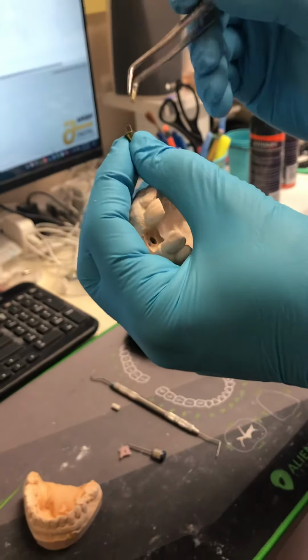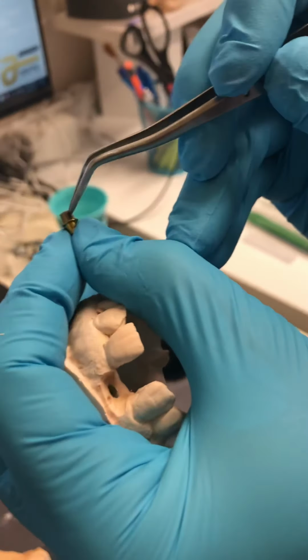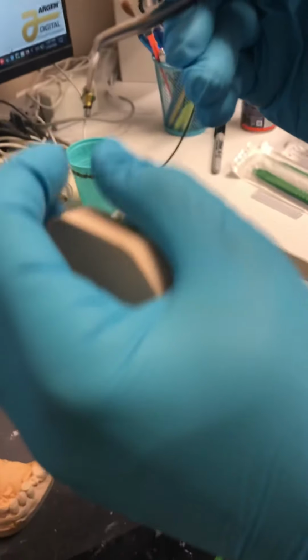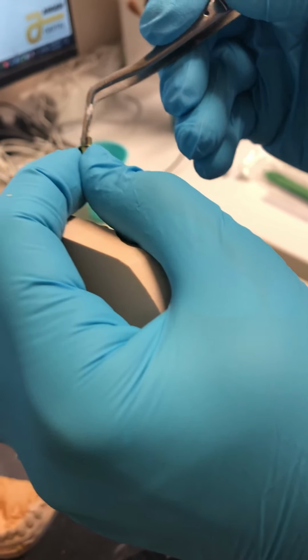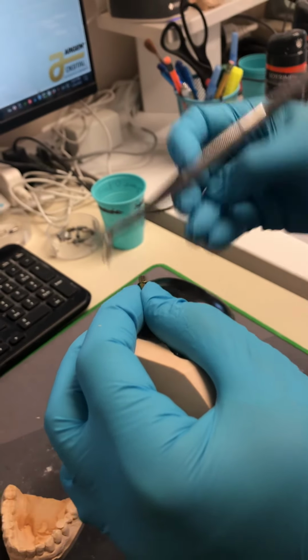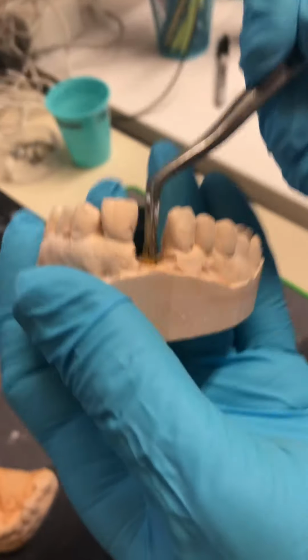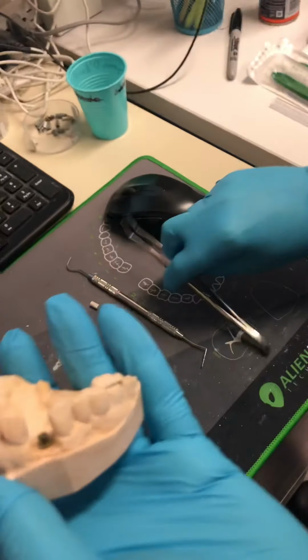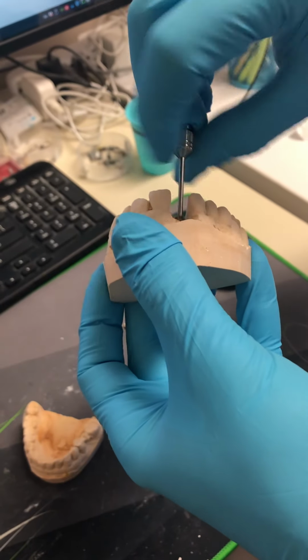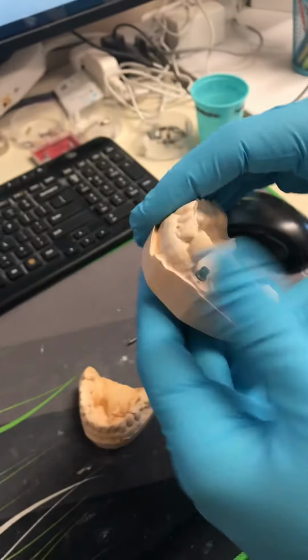This abutment has a round surface with a flat surface. Usually I mark it so I can put it on the buccal. So I place it in. Okay. I screw it in without soft tissue. You can do it without soft tissue. And this is the abutment.